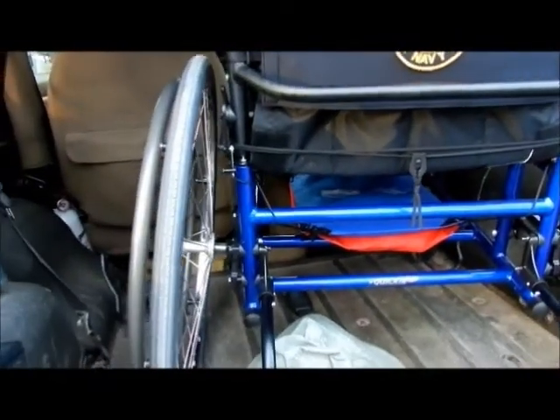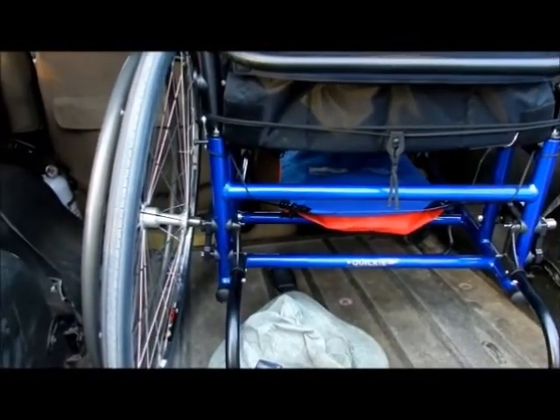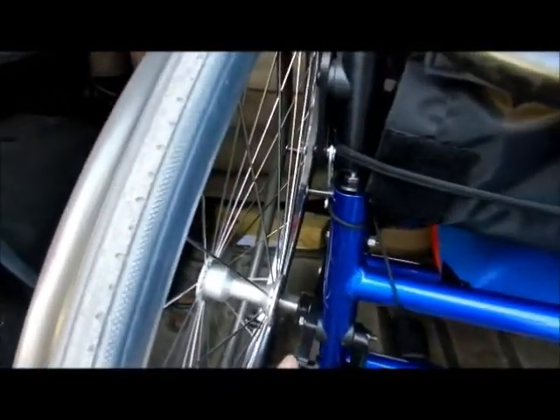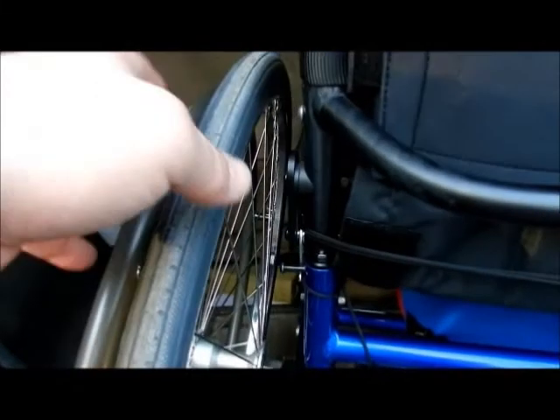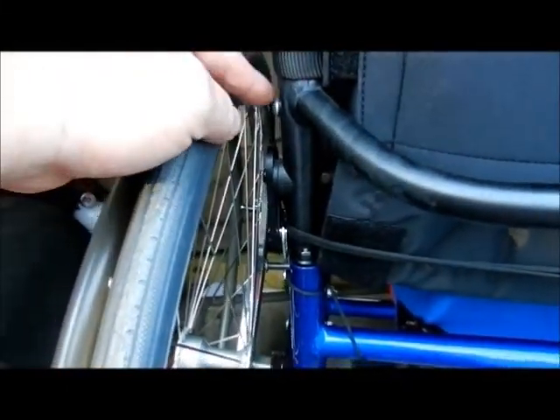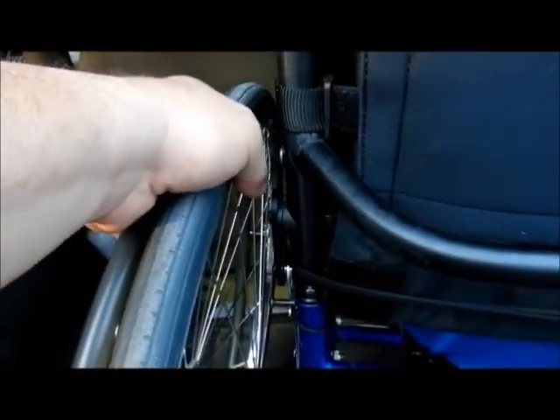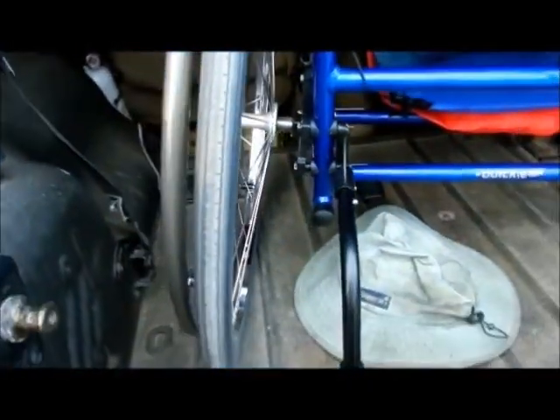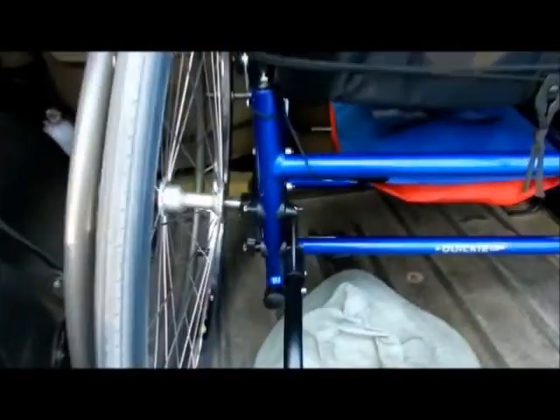Last night, a very good friend of mine — we went over for Easter dinner — and I asked him if he would move out my wheels, because when I was bringing my thumb around here, I would hit this guy, and man, it was hurting. So I needed it out a little further, so now I have a 32-inch clearance from the auto bar to the other side.